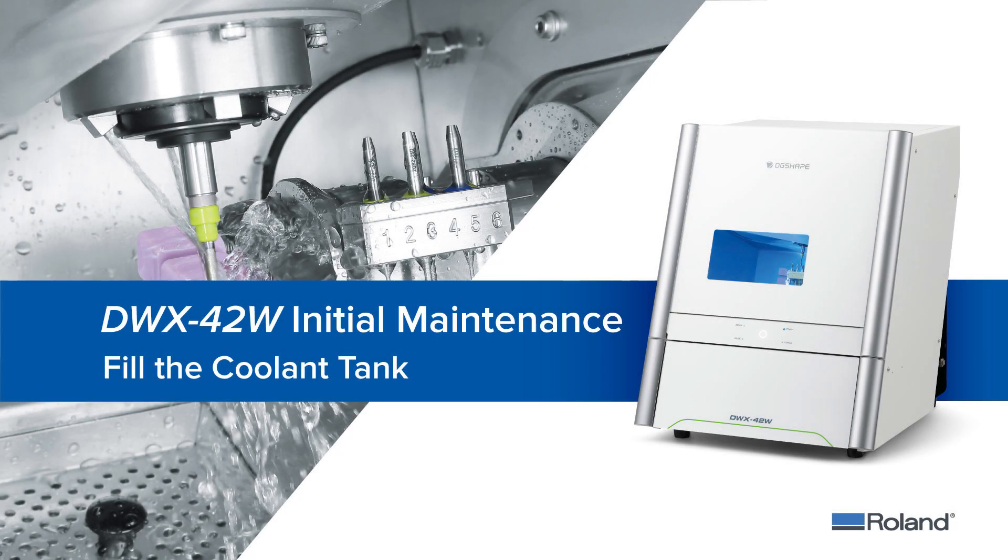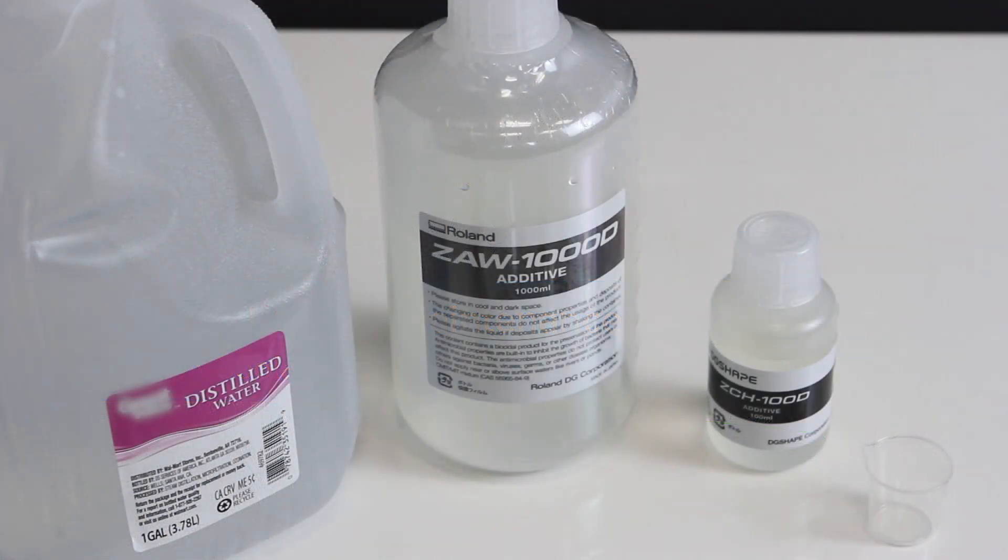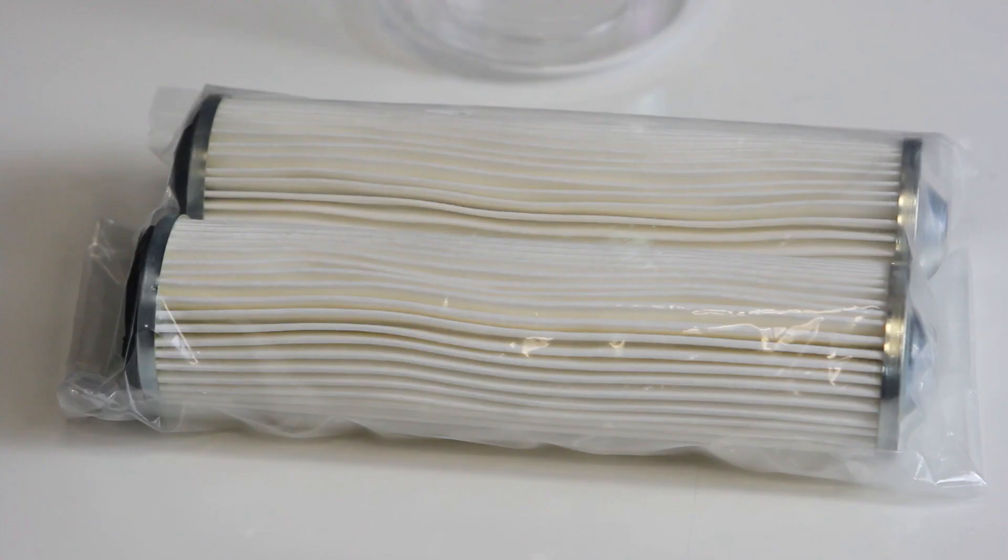This video will walk you through the steps to fill the coolant tank for your DWX42W wet dental mill. To complete this step, you will need distilled water, coolant additive, chelate agent, and two coolant filters.